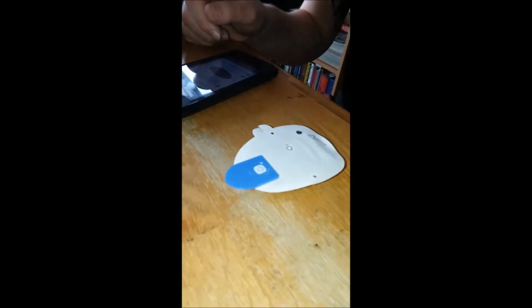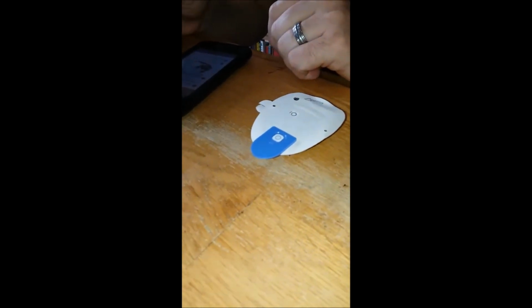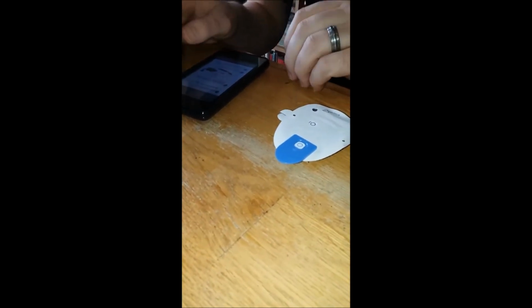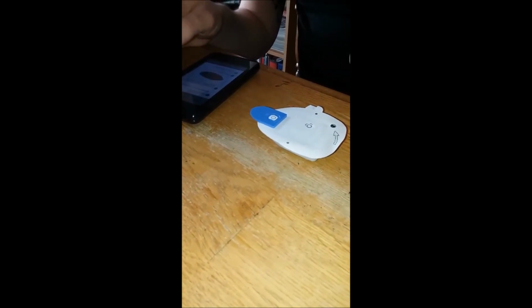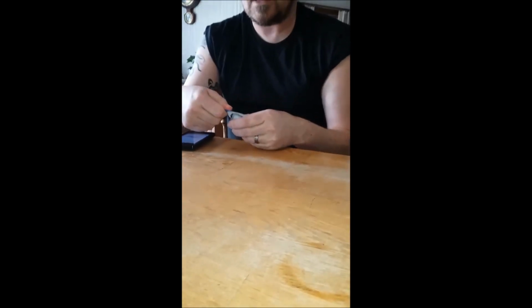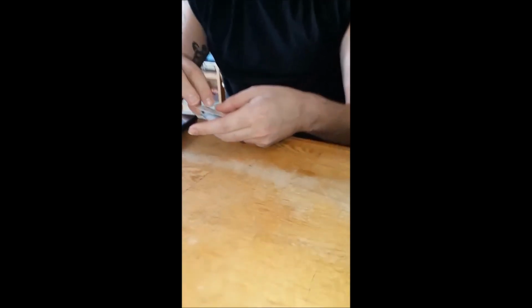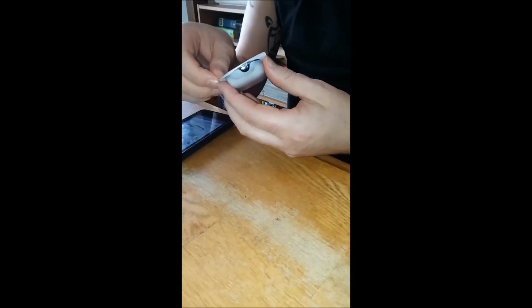This little thing right here that I'm setting up right now is an insulin pump. And I'm willing to bet that some of you have friends that have them as well. This is a newer one. Instead of being attached to my stomach, I can put it on my arm. And I'm actually going to put it on my other arm opposite the glucose monitor. So all this fun little process, and I get to do this once every 3 days or so.